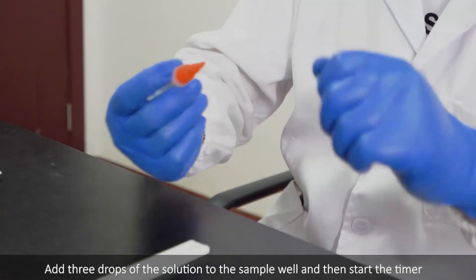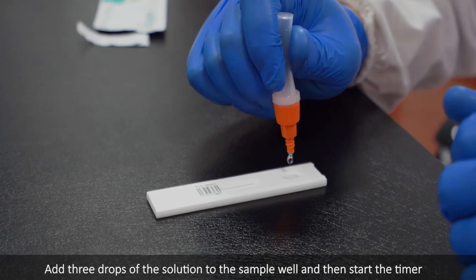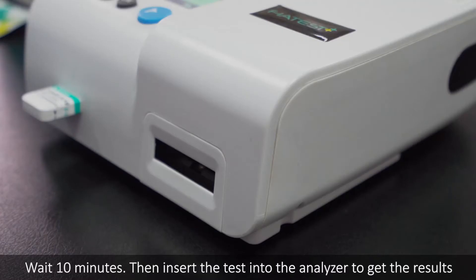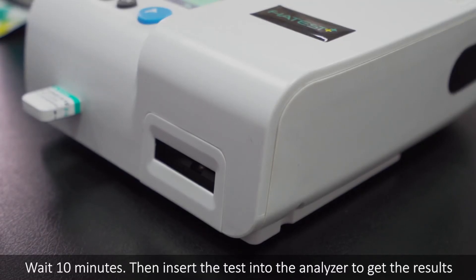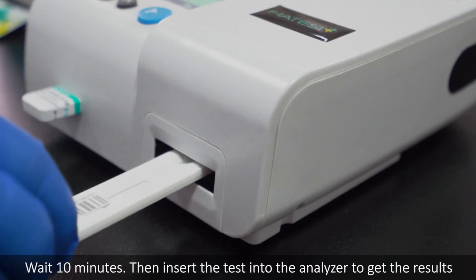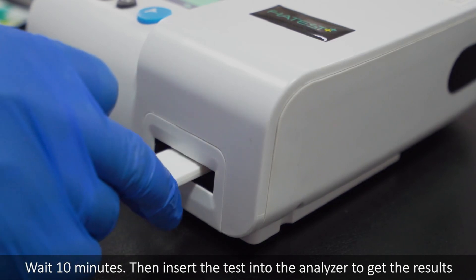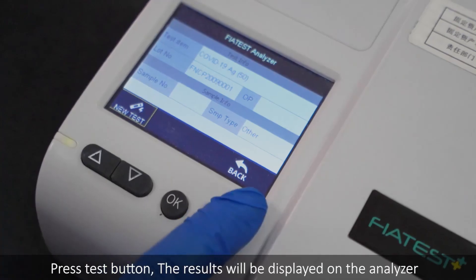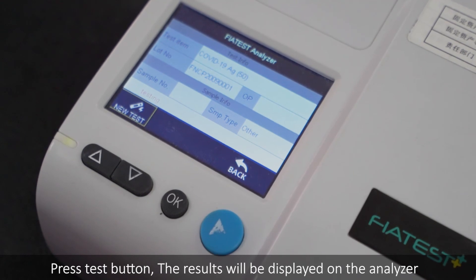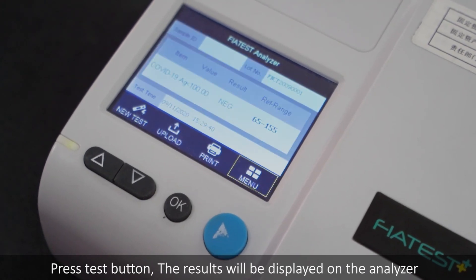Add 3 drops of the solution to the sample well and start the timing. Wait 10 minutes. Then insert the test into the analyzer to get the result and press the test button. The result will be displayed on the analyzer.